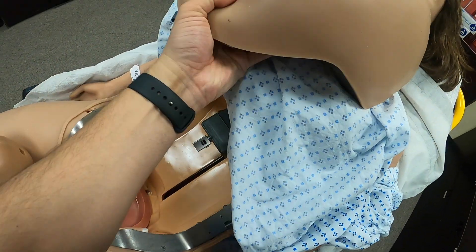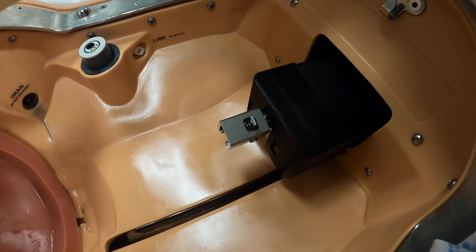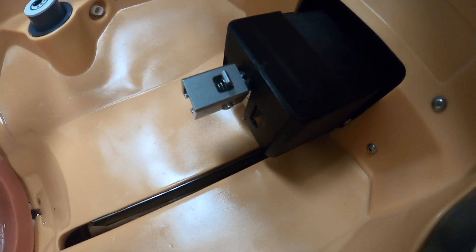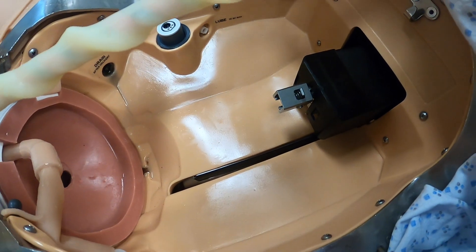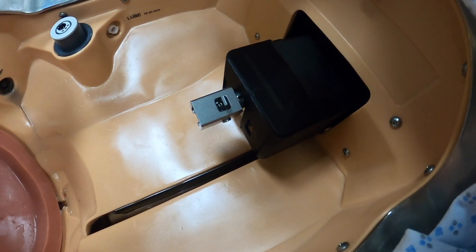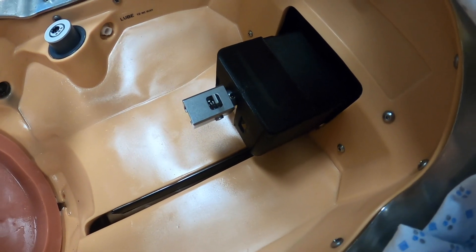Looking at the inner workings of the mannequin, there's the working piston itself. The birthing mannequin is placed into the birth canal here — it uses a piston and piston rod that will give contractions over a certain amount of time.